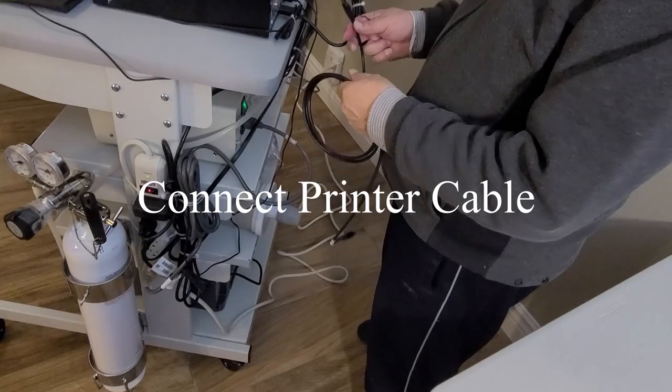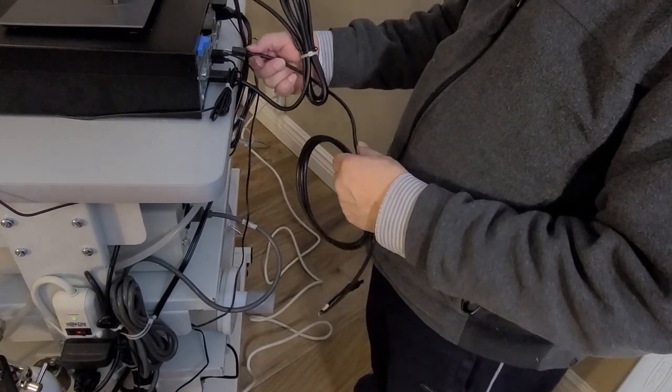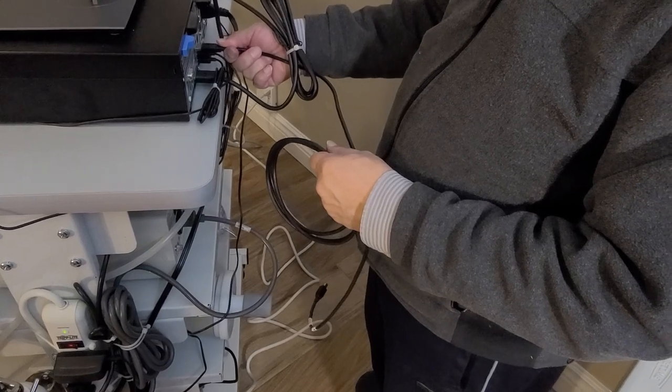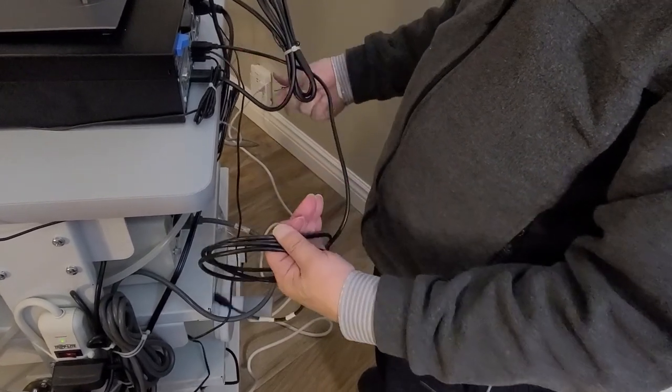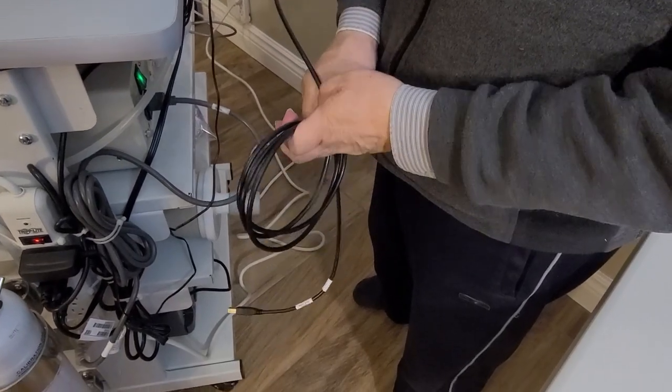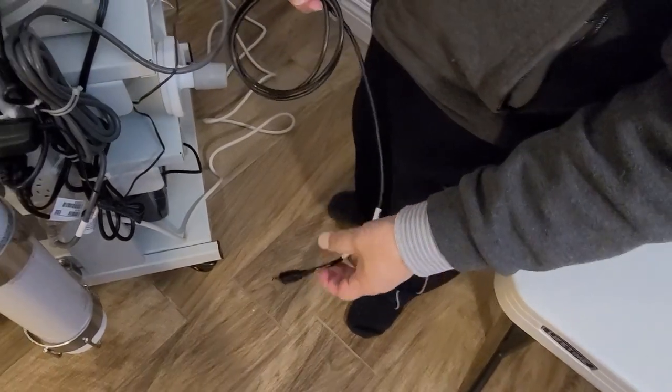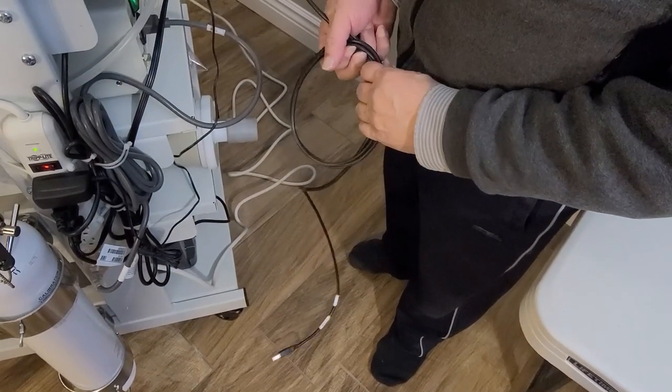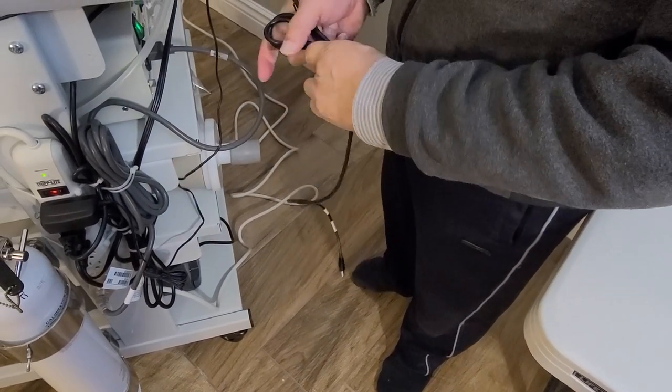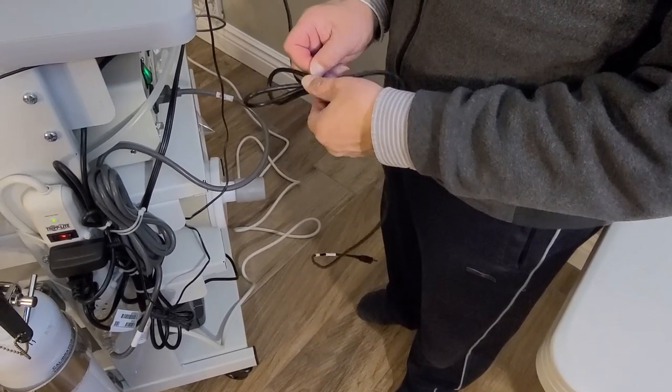Printer cable. How do I know that's the printer cable? Because it's a USB cable. What about the other end? Show me the other end. There we go. Usually I just use a twist tie to shorten.